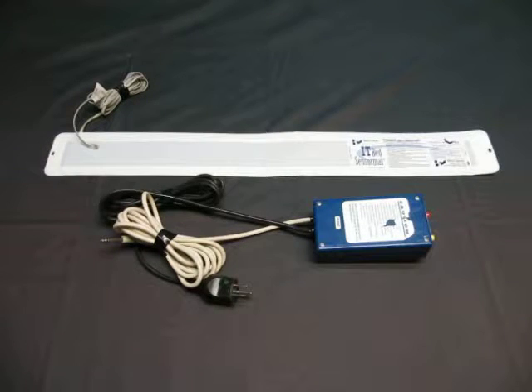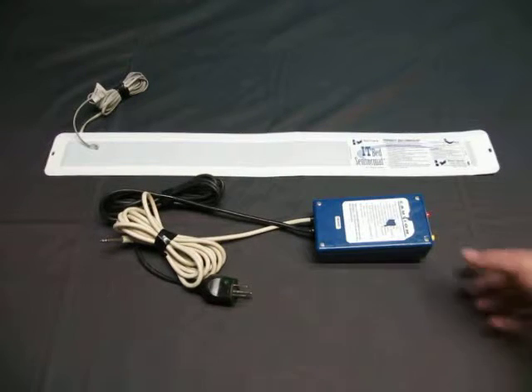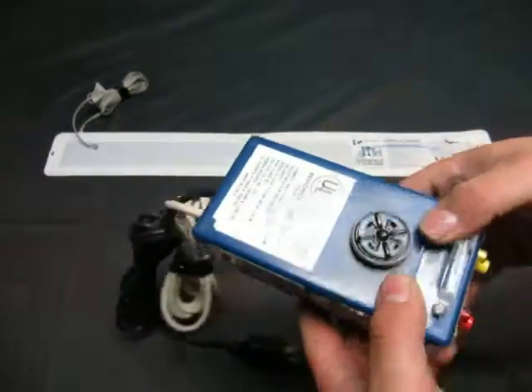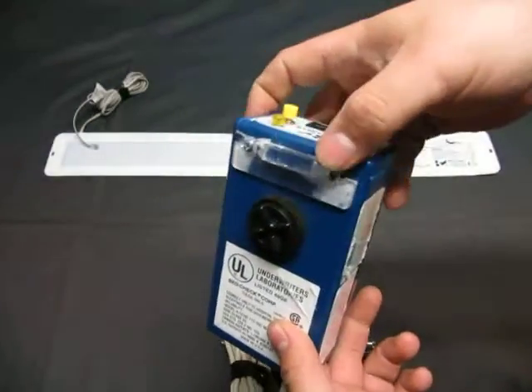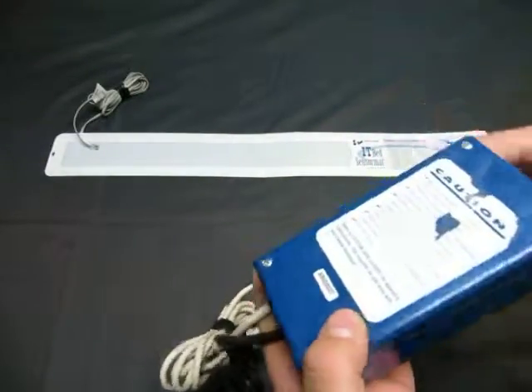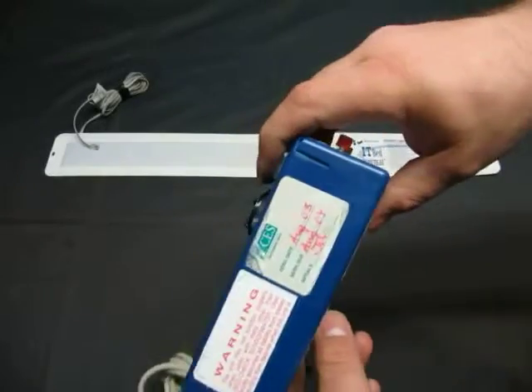Up for auction we have a bed check system with an IT bed sensor mat. It's a Bed Check Corporation unit, Underwriters Laboratories listed. It's got a broken piece right here — its cover usually goes over it. And the label is really toast.